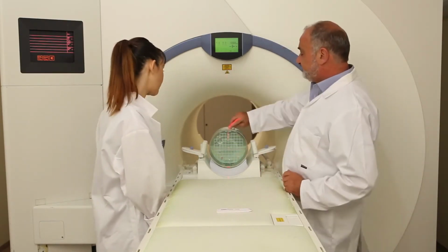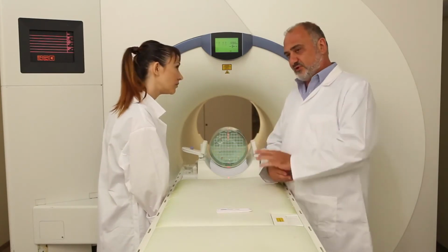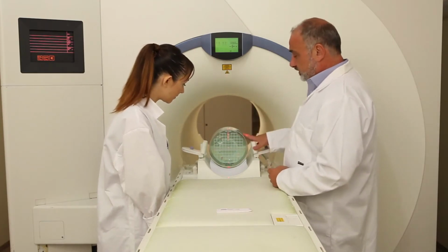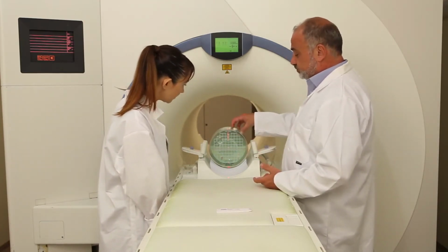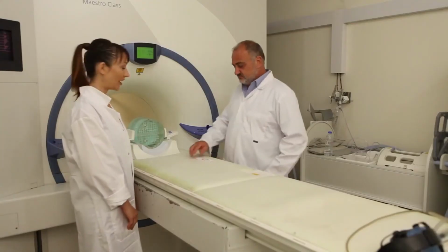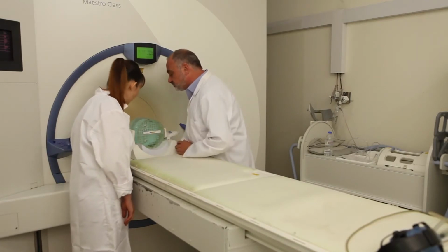the lasers at the specific position here, and then we're ready to cover the phantom with the rest of the coil. We already have the markers in the coil, so we know that this specific position is at the center of the half edge of the coil. Let's check the alignment now. Seems to be okay, yes.